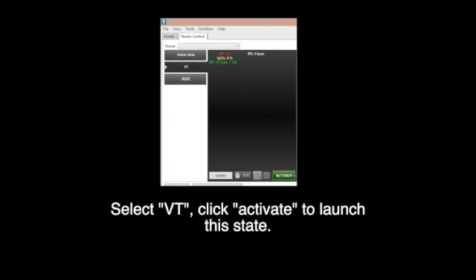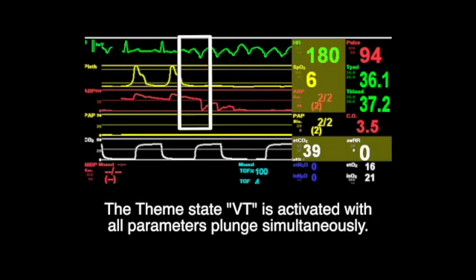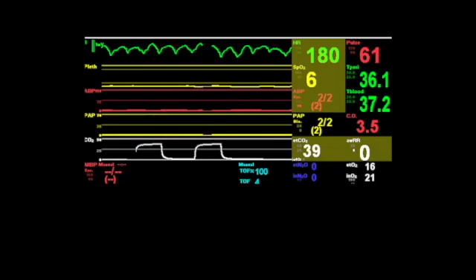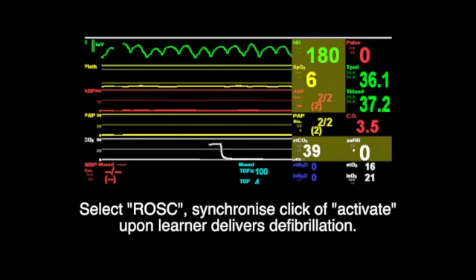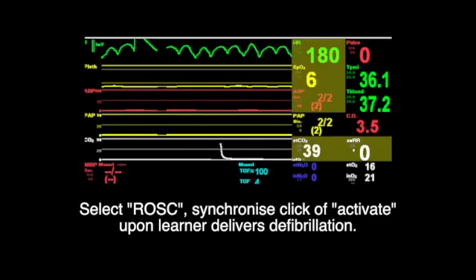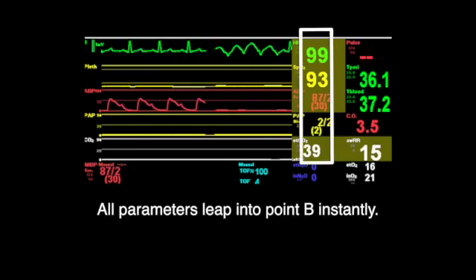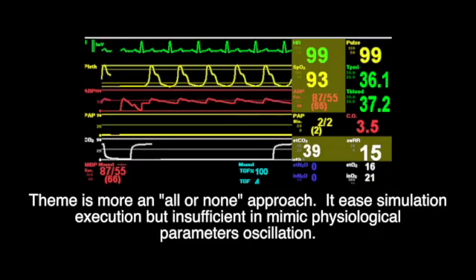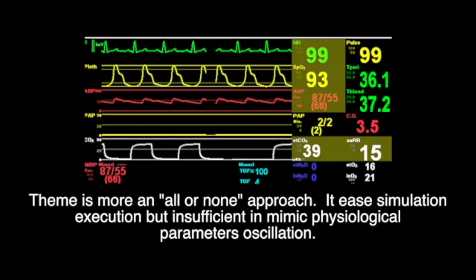Select VT and click activate to launch this state. The theme state VT is activated with all parameters plunging simultaneously. Select ROSC — synchronized click of activation upon the learner delivering defibrillation. All parameters leap to point B instantly. Themes is more of an all-or-none approach — it is simple in simulation execution, but insufficient in mimicking physiological parameter oscillation.